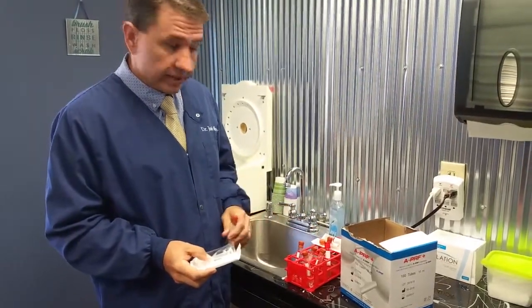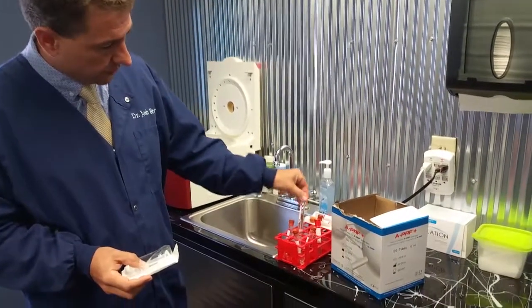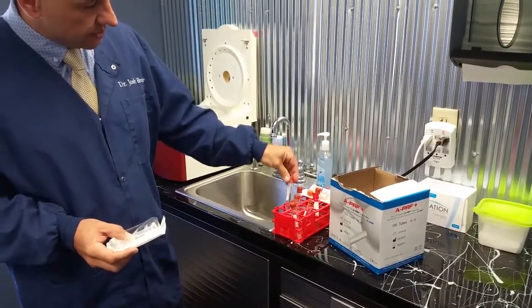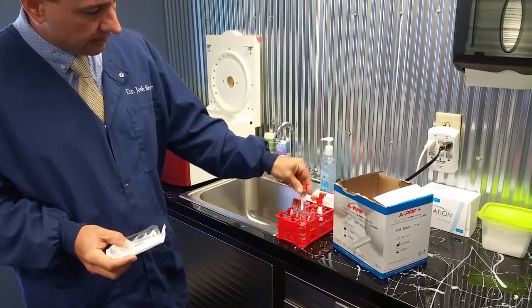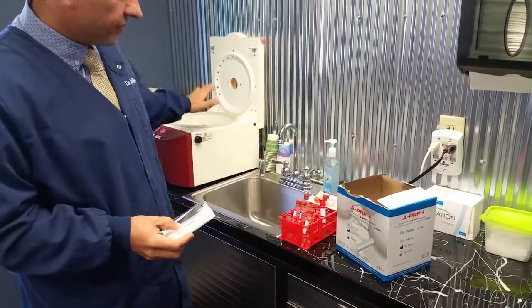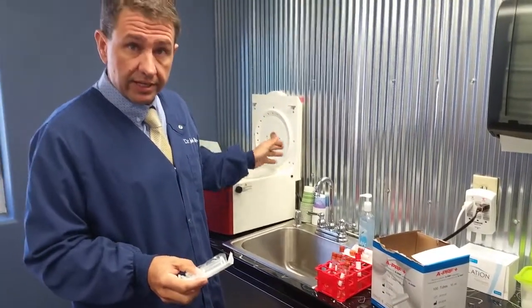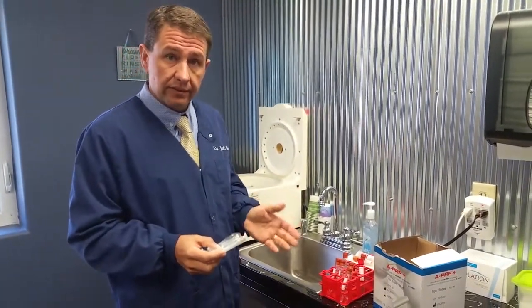Each of the colored caps are a different thing. What we use is a small tray system here with water, because sometimes you don't get the same amount collected in each vial. Each of these is a different amount fill rate, so that when we balance the centrifuge, we can have a good result at the end. It's always about balancing so you have less vibration.